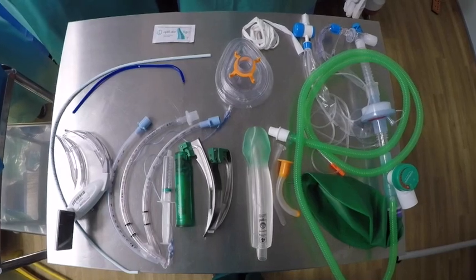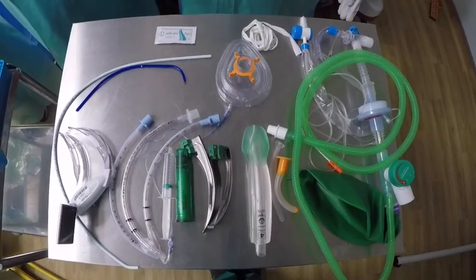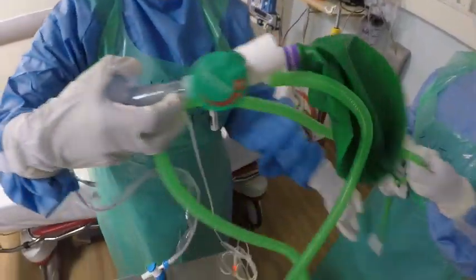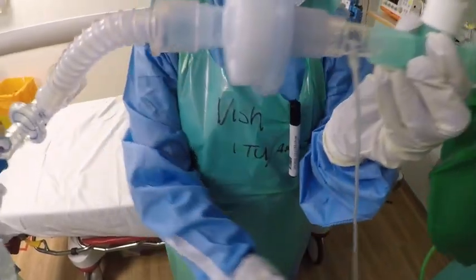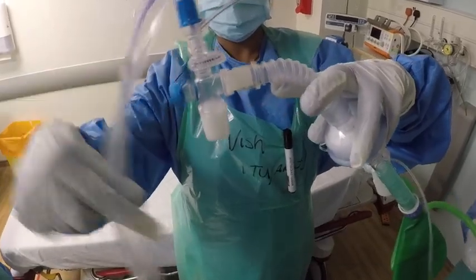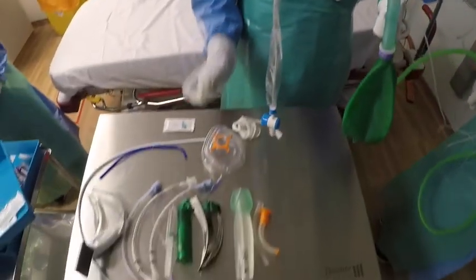This is how we envisage the airway trolley to be set up. In an ideal world we'll get a photo of this laminated so that the airway assistant just has to match the items to the picture. We have a water circuit which is going to be plugged in at the wall on one of the Christmas tree valves. We've then got the end-tidal filtering line which is upstream of the HME filter, and the standard catheter mount is being replaced with an inline suction catheter mount. Below that, for the patient arrival, we'll be attaching a mask — and that is all the kit we're going to be passing in on the intubation trolley.